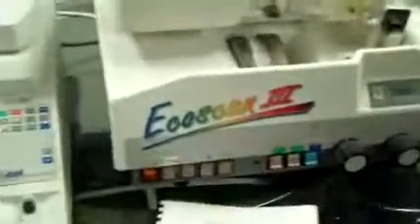From DCSP Medical, looking at a Briot Echo Scan 3 as well as the scan form. Everything's in used condition, but appears to be operating alright.